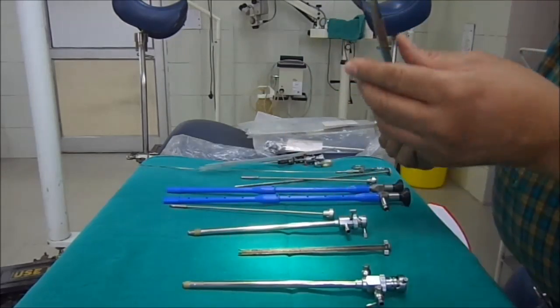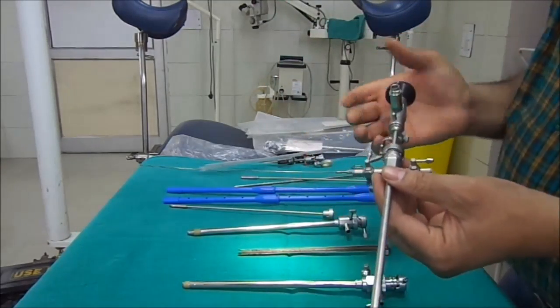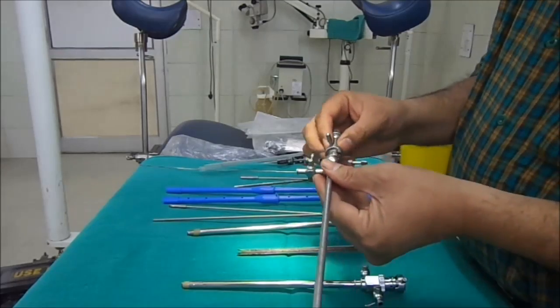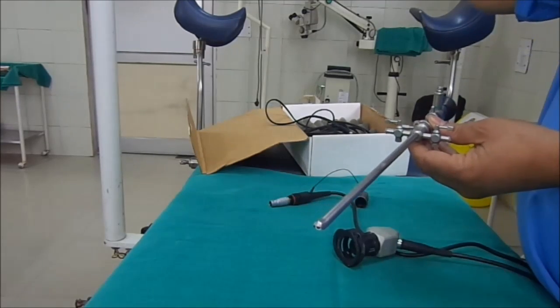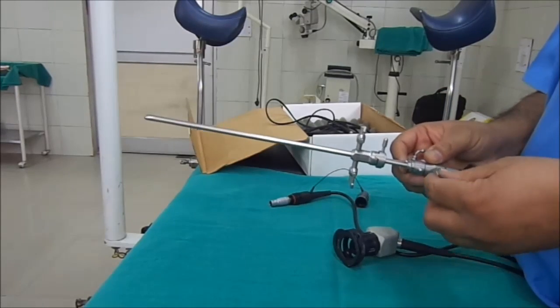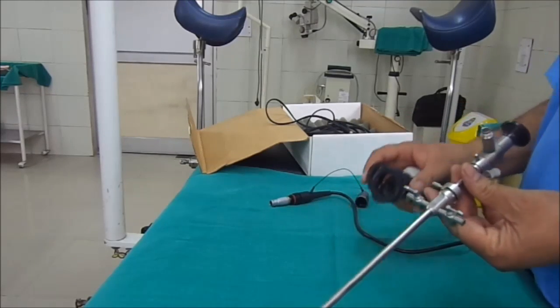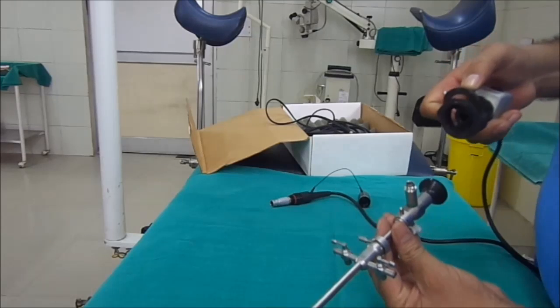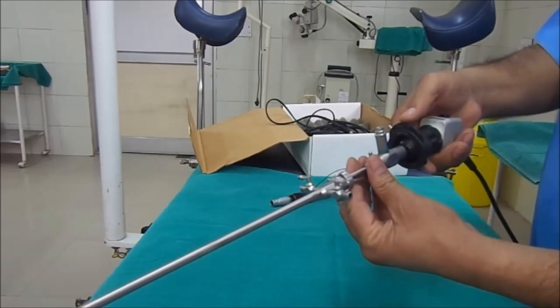In the same manner we can disassemble the parts of the cystoscope — first by unlocking the telescope, then the telescope bridge. The next step is to connect the assembled cystoscope to the camera by the camera cable. This camera cable has two ends: the first is the telescopic end, which is connected to the head of the telescope by simply pressing it in.